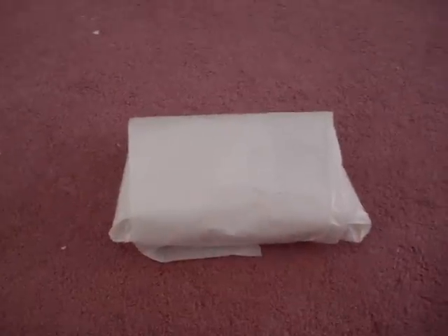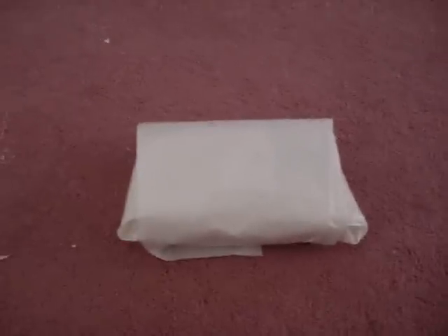I will be filming opening a dressing tray. I already took the dressing tray out of the plastic and now I am going to open it. I'm going to try to do this with one hand since I am filming from a specific angle and also trying to get the camera to focus.